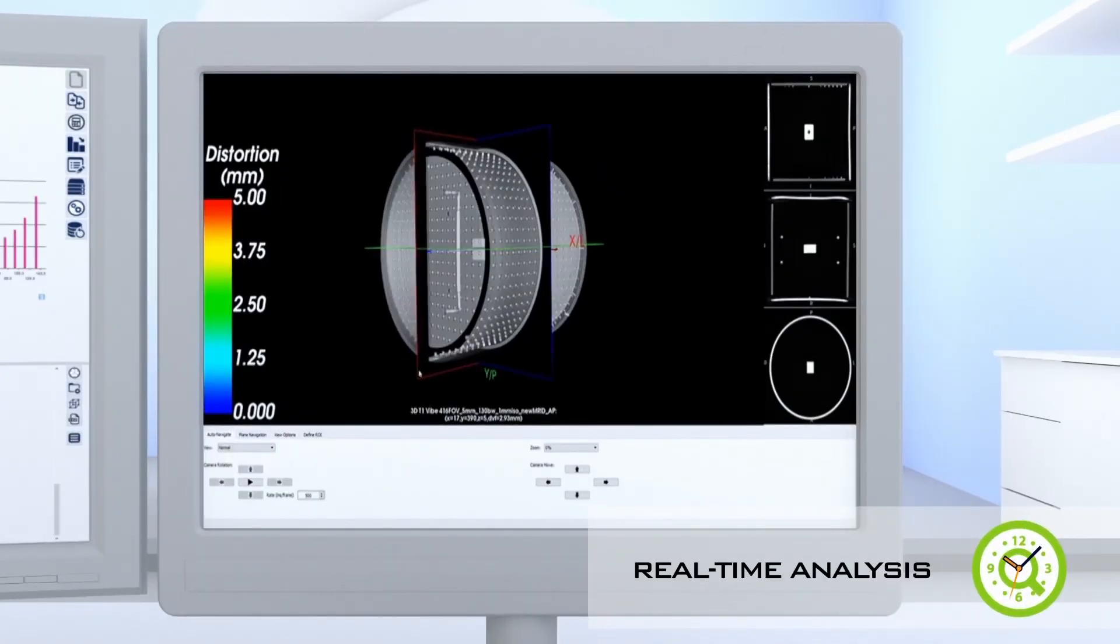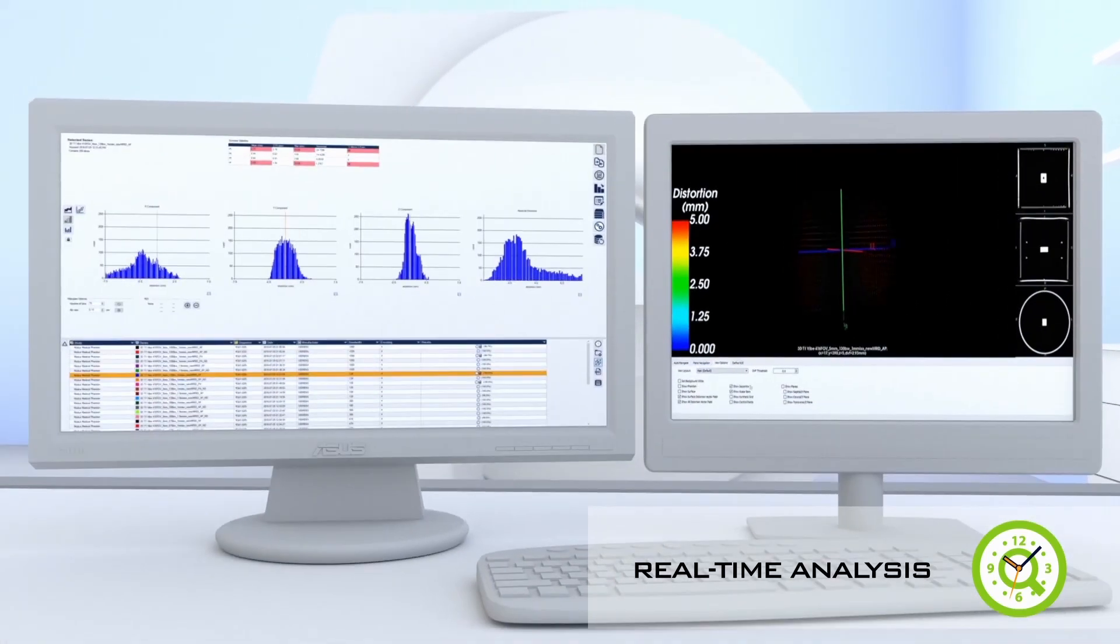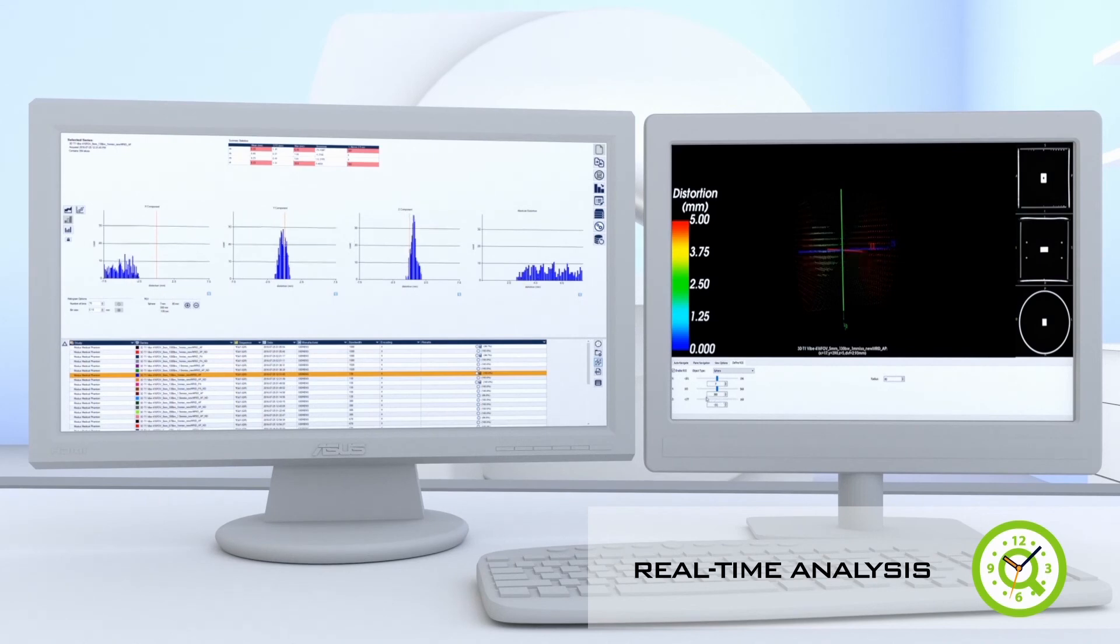Sophisticated 3D DICOM viewer with region of interest selector enables users with the ability to update charts and graphs in real-time to user-defined volumes and gain further insights.